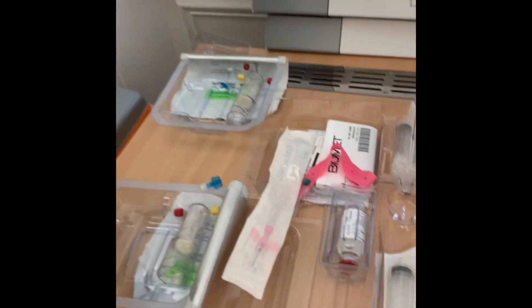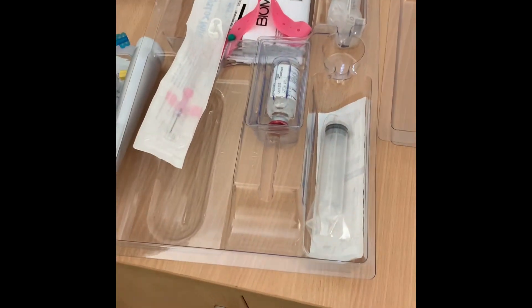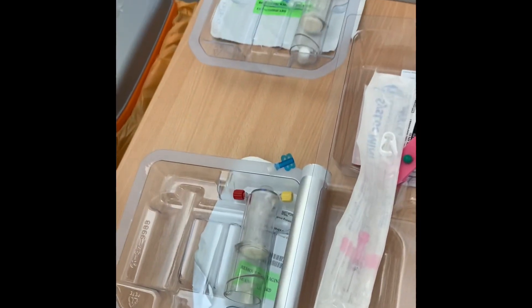55ml of blood, so you've got all this together, and then you inject it into the bottle which is in the end. So that's just — I'm going to show you the video.